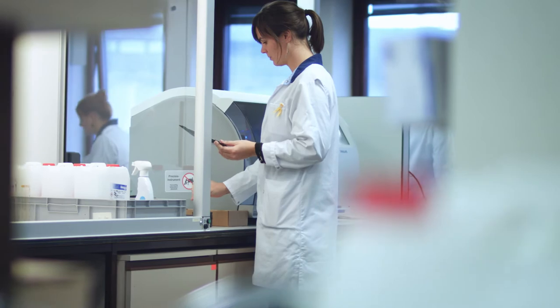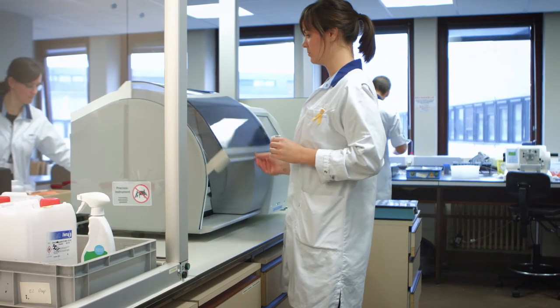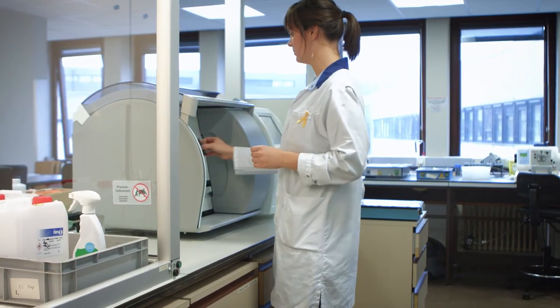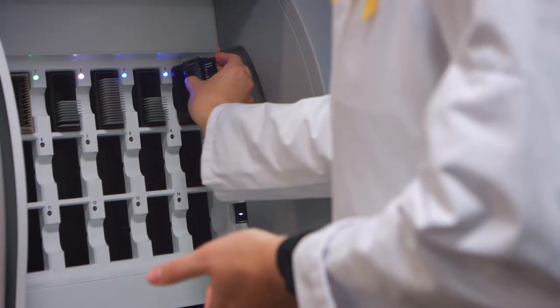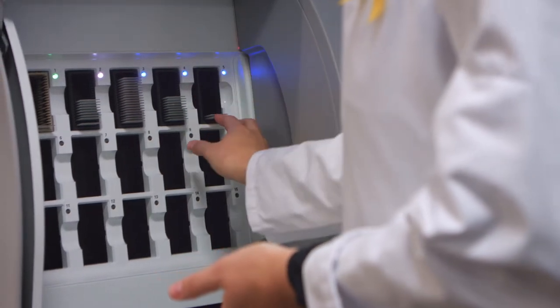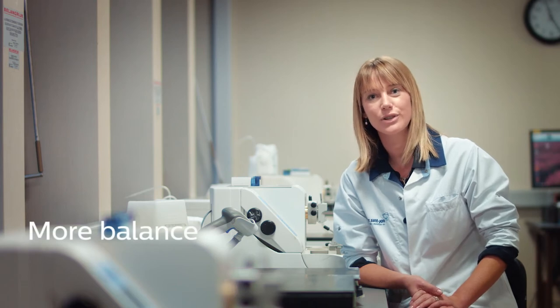Before, we spent a lot of time sorting out slides by case number and by pathologist. Now we just have to put the slides into the racks and load them into the scanner. Through our LIS, the slides are assigned to the correct pathologist. That makes the work less stressful for the lab technicians and there's more balance in their job.